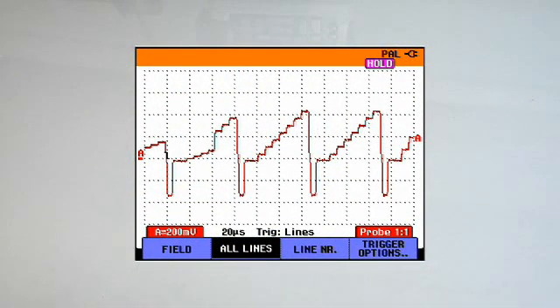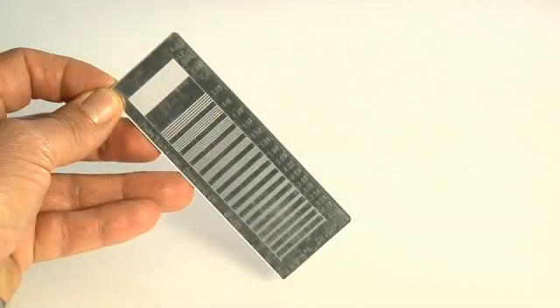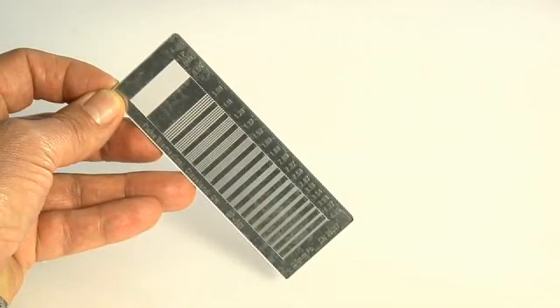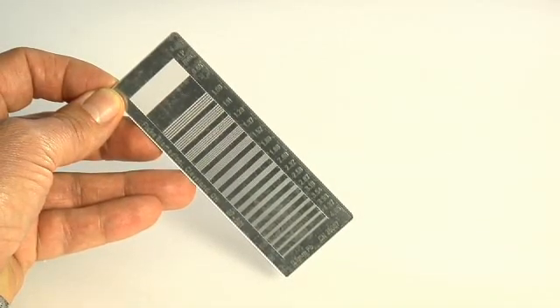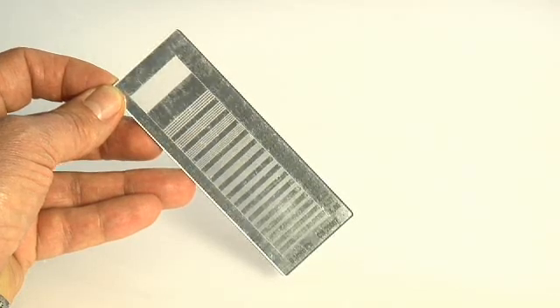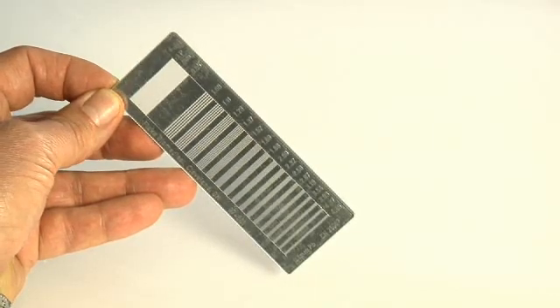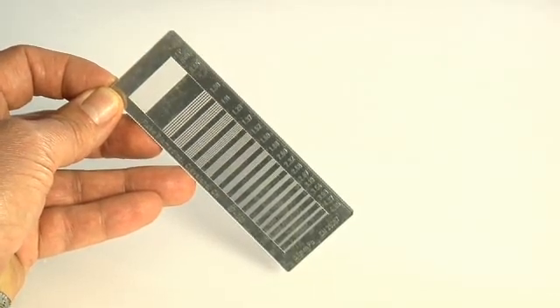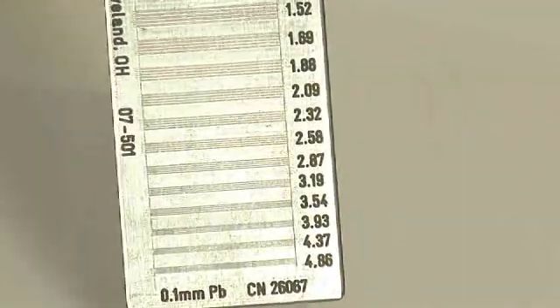One useful technique allows quick analysis of the video image focus using a line pair test pattern. The test pattern is divided into line pair sets with increasingly fine resolution. One can compare baseline values with current values if a video focus problem is suspected.